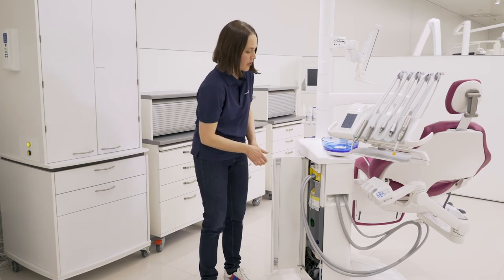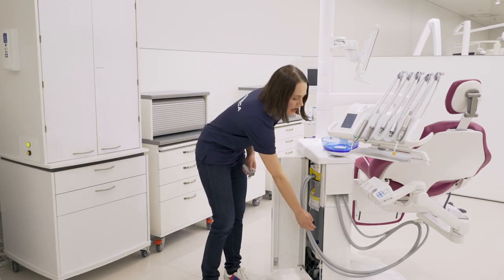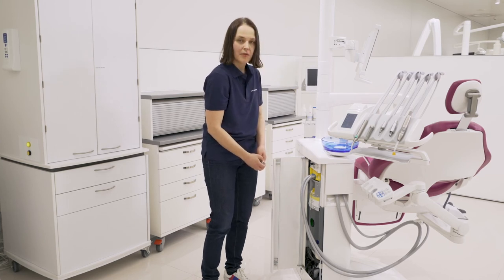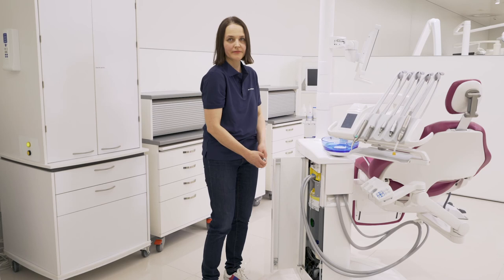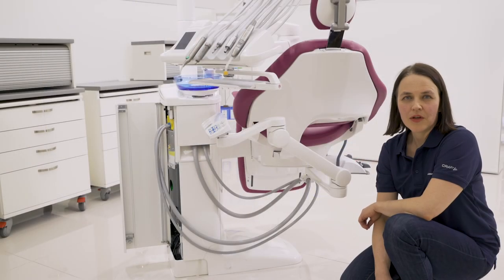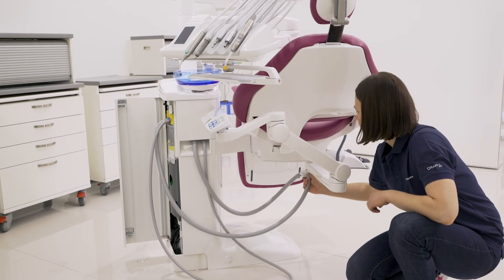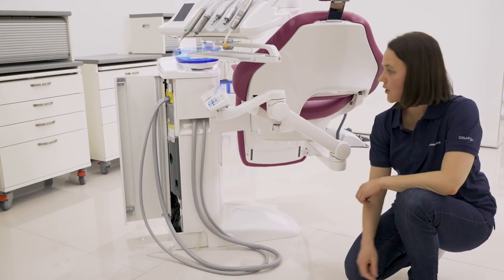The unique system works so that the suction tubes are filled completely, ensuring there is enough contact time for the disinfectant to act. If you have long suction tubes, you should place them on the floor to make sure that they are filled completely.